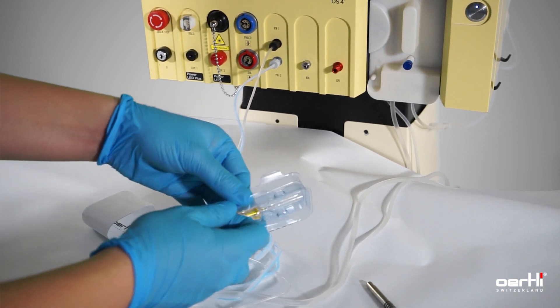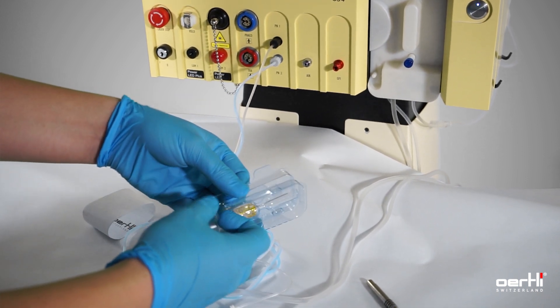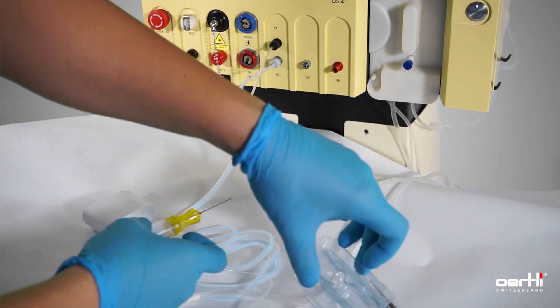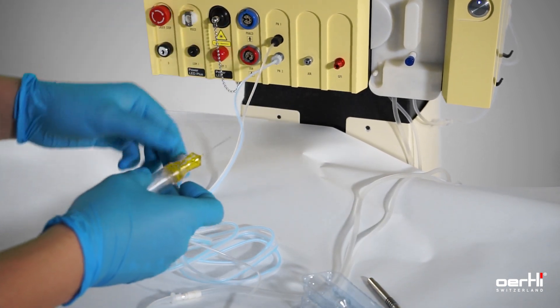Remove the cutter from its cover. Be careful and prevent any bendings on the cannula side.